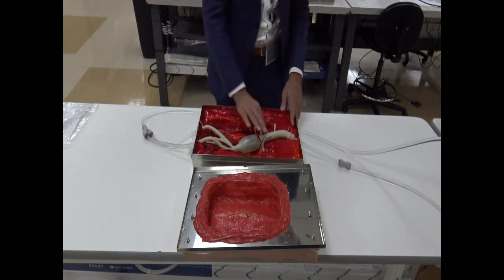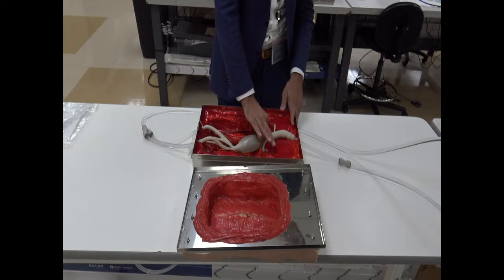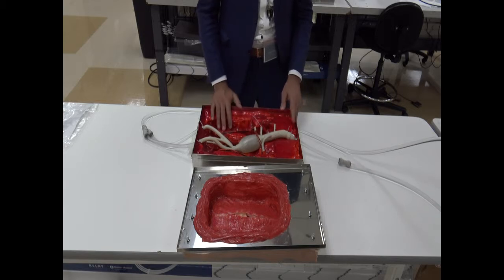So important, as soon as the delegate is clamping the aorta, then you gotta switch off the pump.